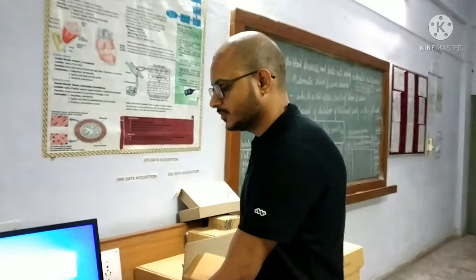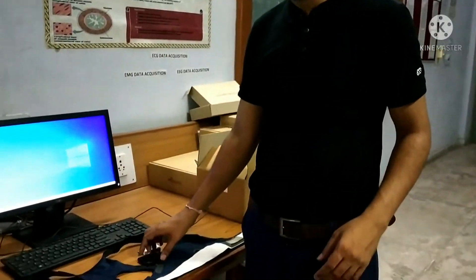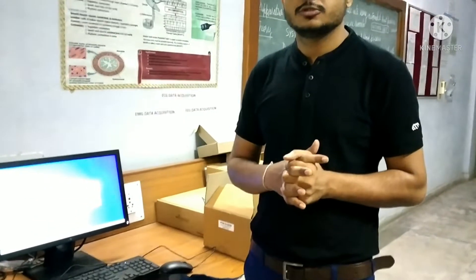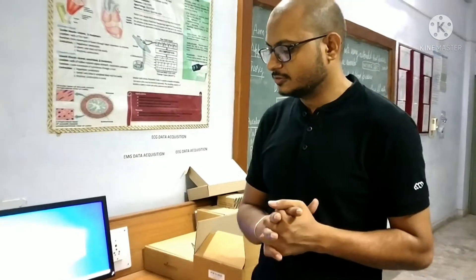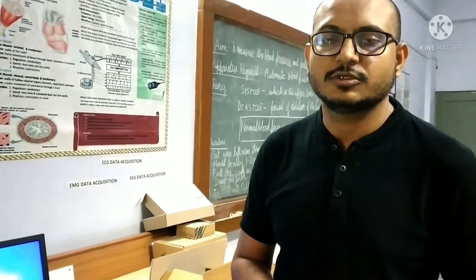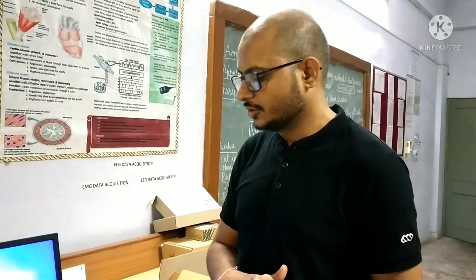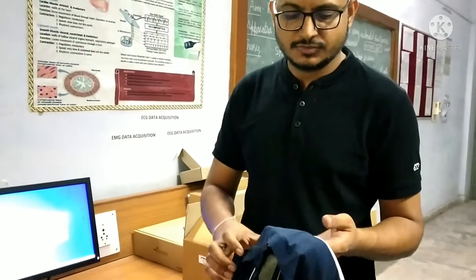This is from the ED Instruments Lab, and the purpose of explaining this device is to use it in various research purposes such as physical activity monitoring. I have done my research work on physical activity recognition with the help of this kit, so I have immense interest in these types of devices.